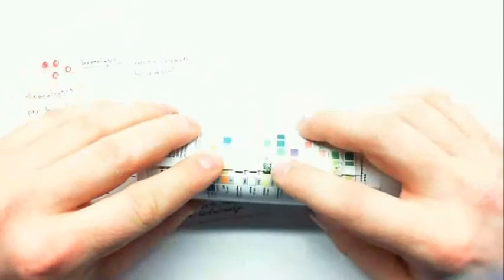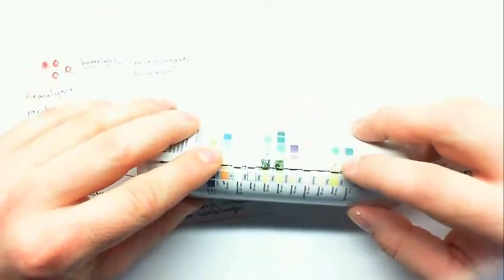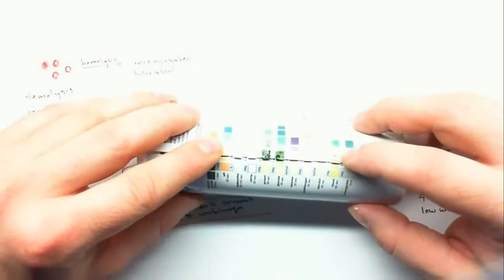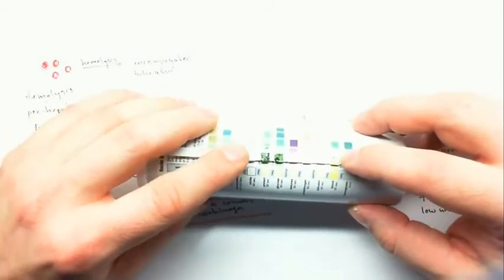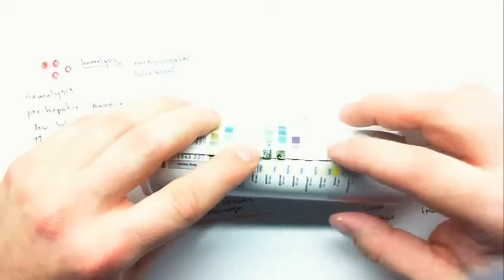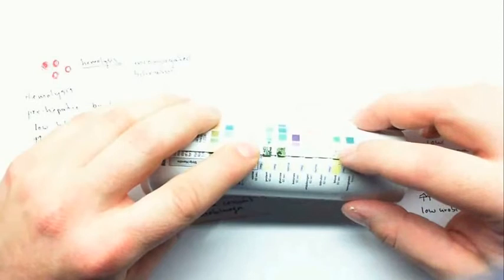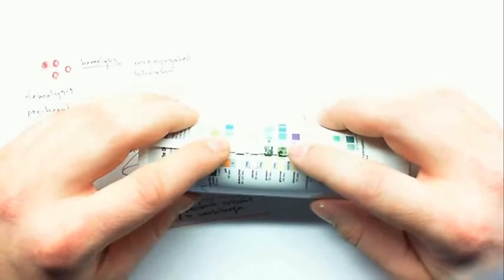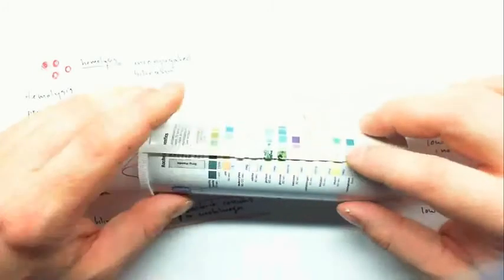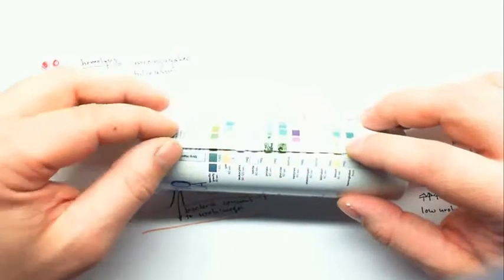In this one I've got protein present, glucose present, and I've also got spots of positive on the blood pad, so that means it's blood and not hemoglobin. This is a pretty good sign of hypertension or preeclampsia. If there is a really high blood pressure, you can push protein through the filtration membrane, and you can also push blood through the filtration membrane. Also, you might be pushing fluid through so fast that you can't pick the glucose back up, and that would result in glucose in the urine. So this would be an indication of really high blood pressure in hypertension, or it could also be preeclampsia.